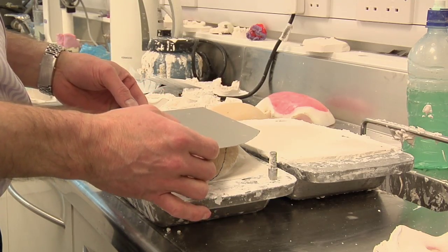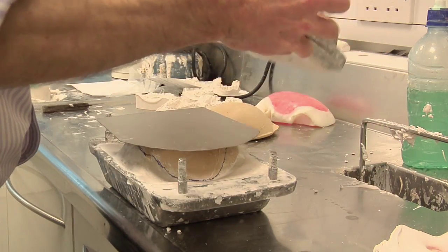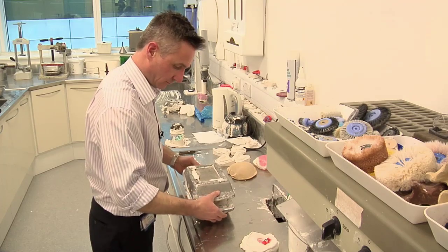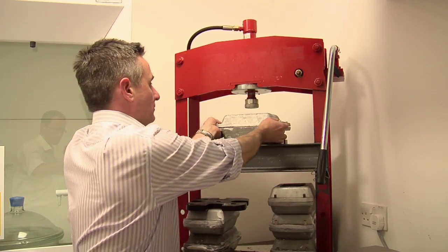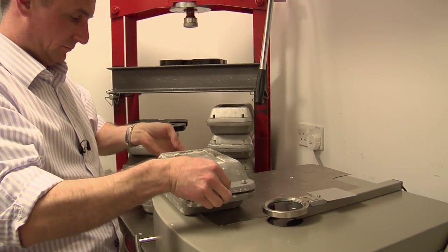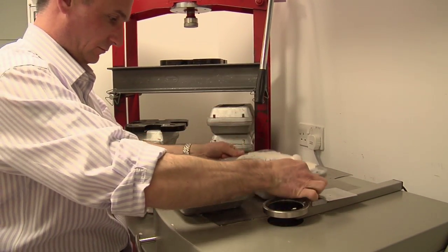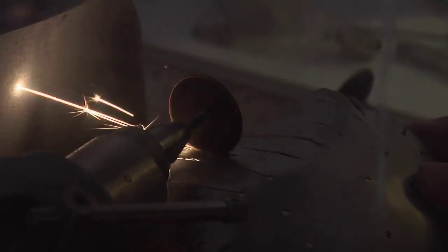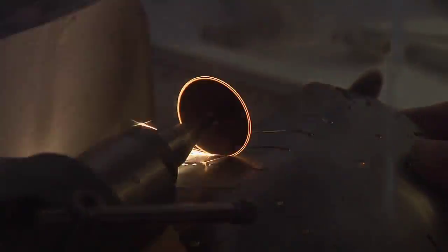We start off with a flat sheet of the specified titanium and start pressing it within the two-part mould. This is done over a period of one to two weeks, and we have to keep revisiting the press and the plate to cut it down slightly, adjust it, and make modifications.